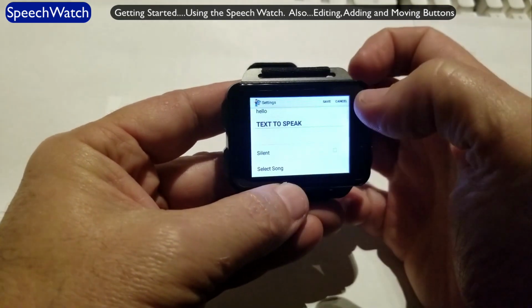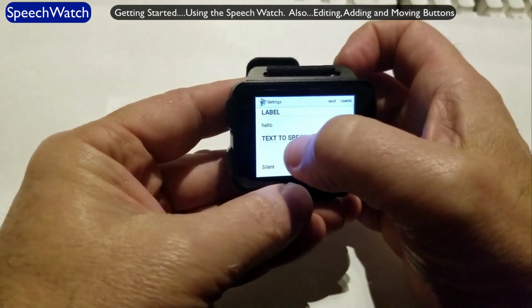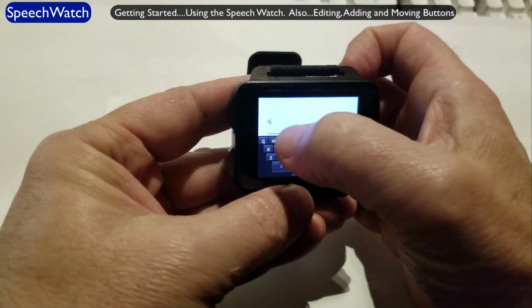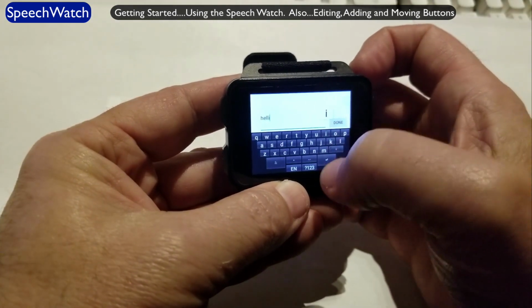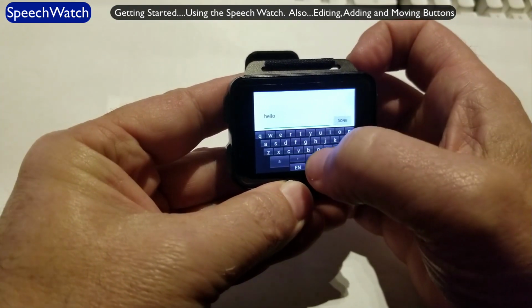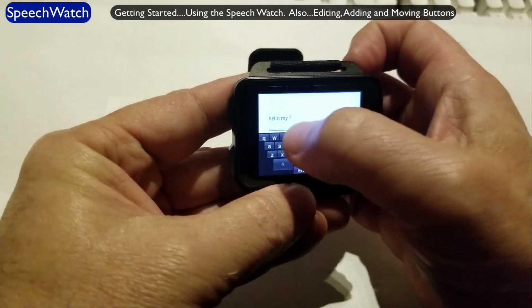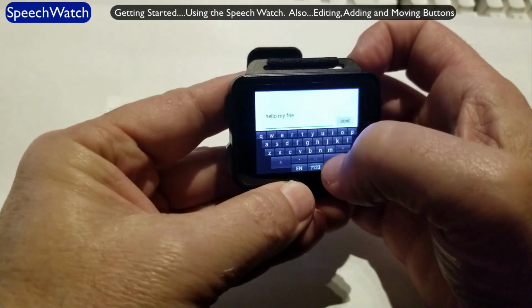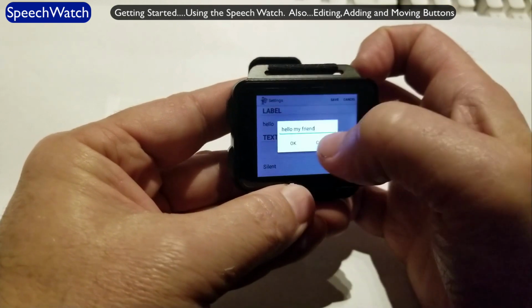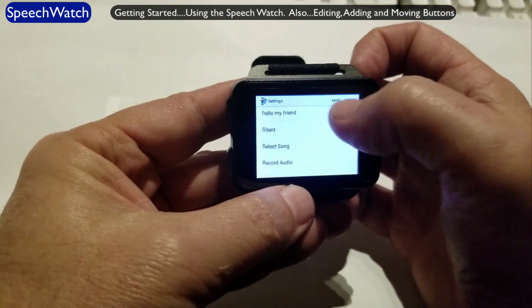Text to speech, that hello is fine. Actually, let me do something. I will make it longer. The text to speak will actually say hello, my friend. Okay, so the label says hello. That's what the button looks like. But when you touch it, it will say hello, my friend.